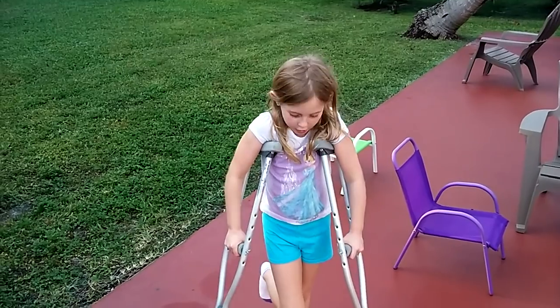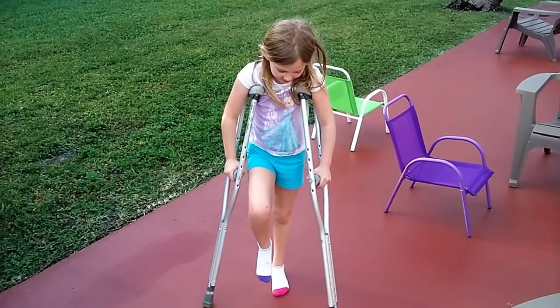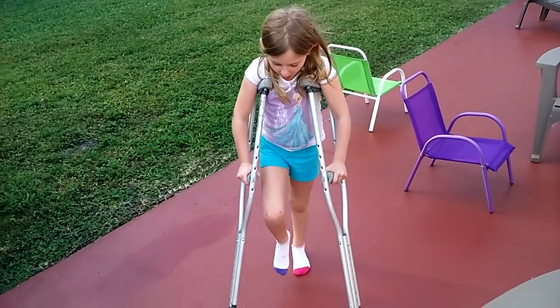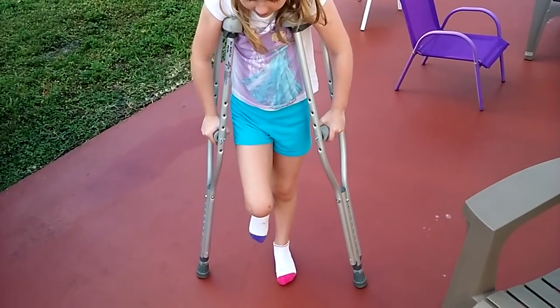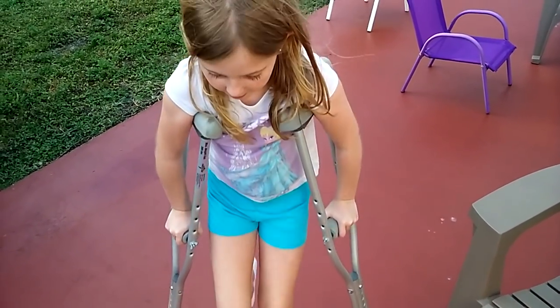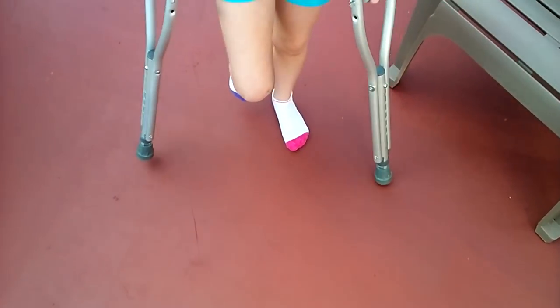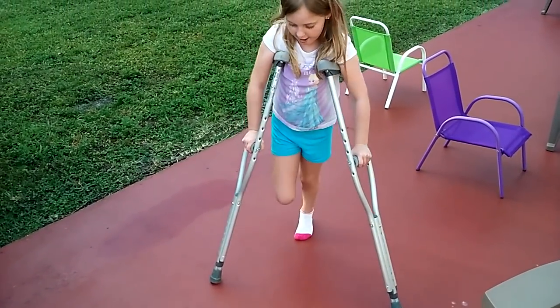And then put your leg up. And then you want it to be slightly in front of your foot, the foot that is injured. But I don't have an injured foot, so pretend — let me see you walk with them, pretending. So you go up, and then hop. Up, hop. Like that, up, hop. Like that. And then you never go backwards, but that is how you go backwards. Going like that.